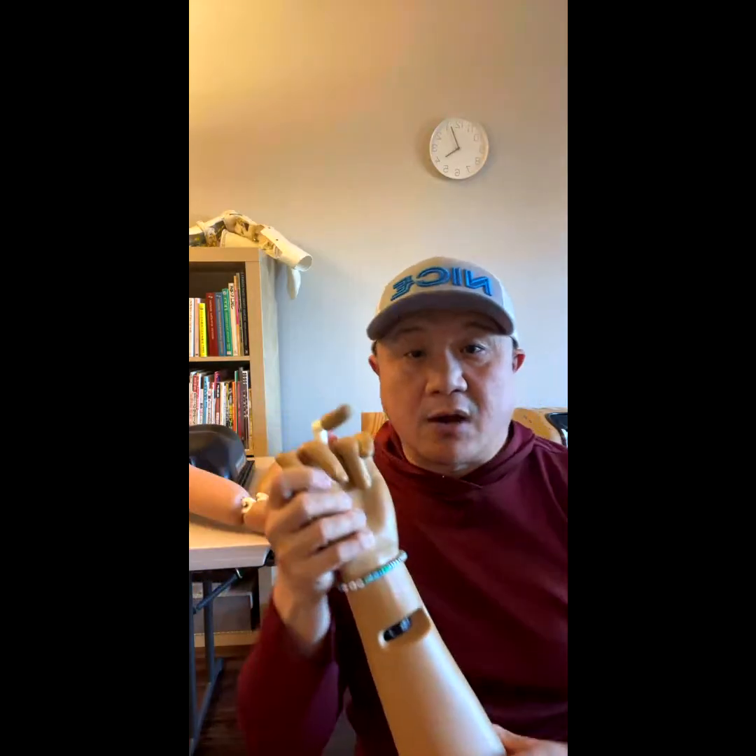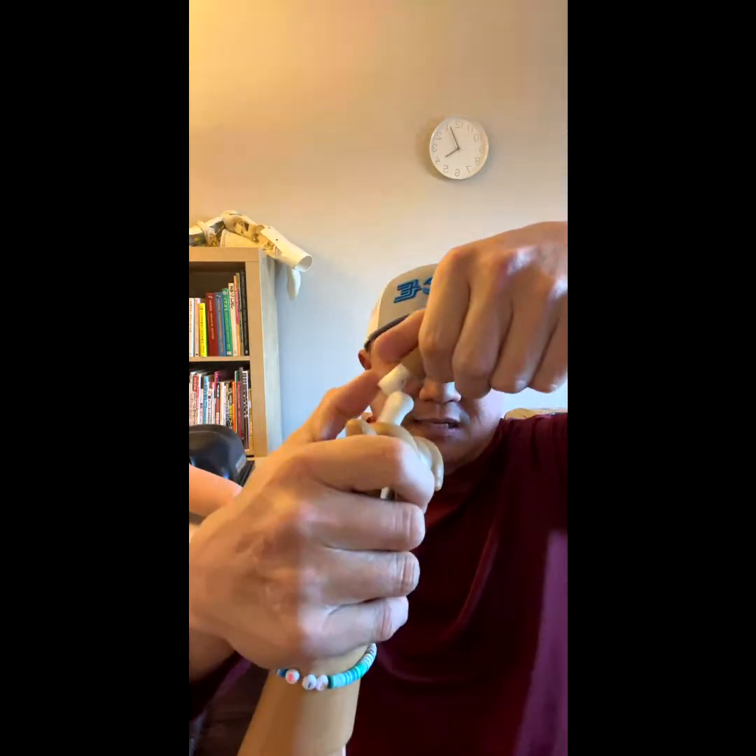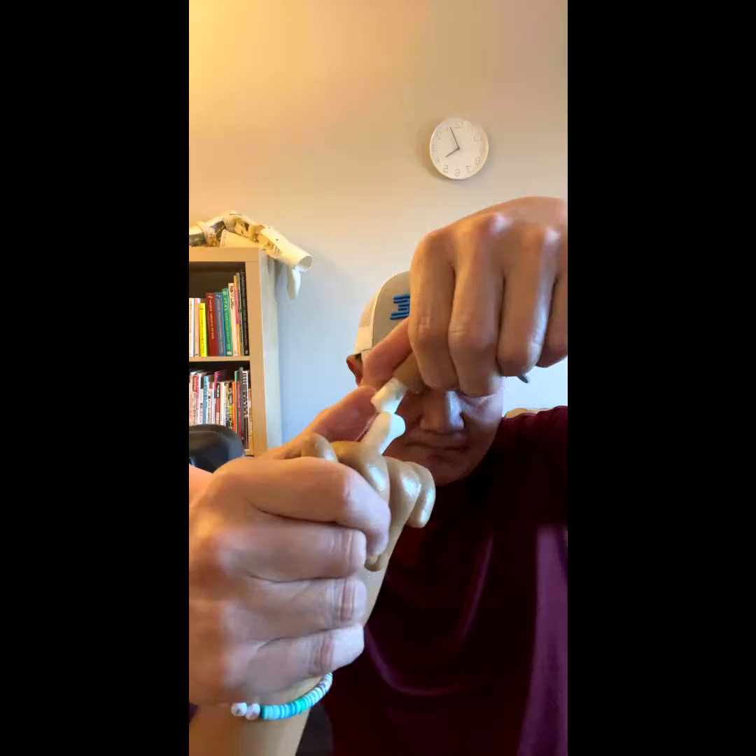This is for sale. This is a great tool for orthopedic and emergency medicine doctors because there is no way to practice reduction technique — every actual reduction is the practice. But no more. No more waiting. You can practice as many as you want. The finger model snaps.